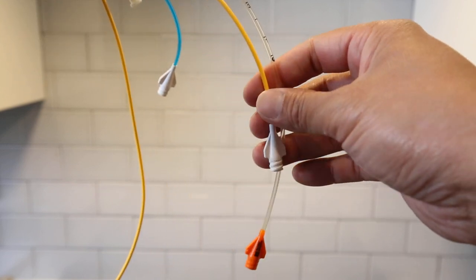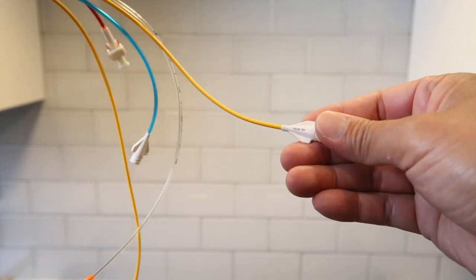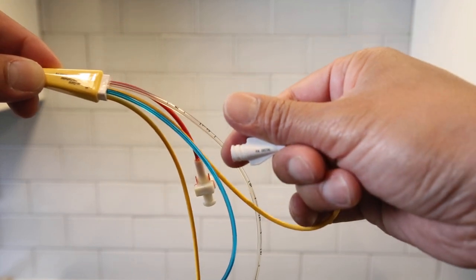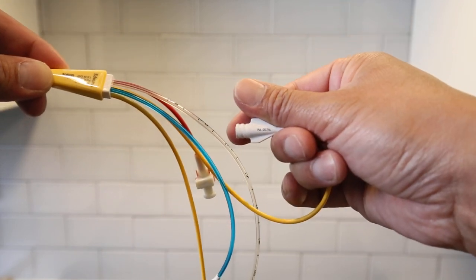Then you have your next one, which is your PA distal.